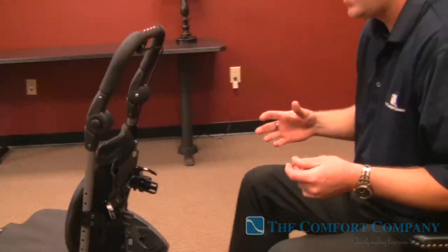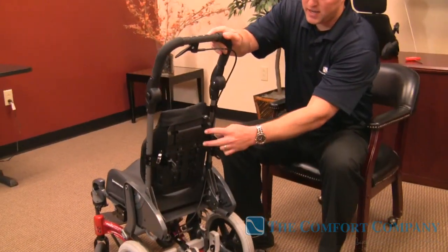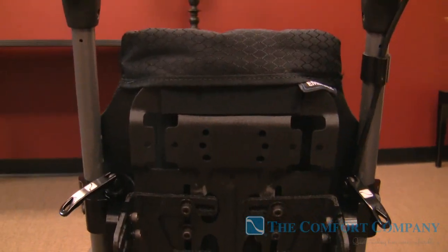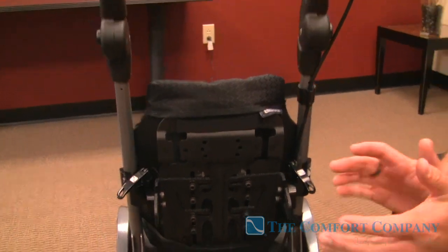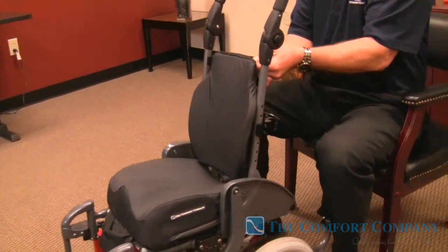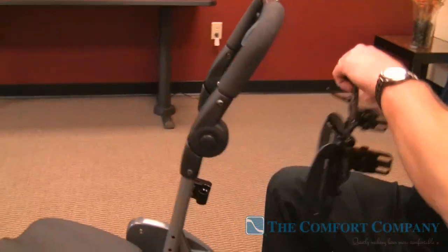For growth, the old way — T-nuts, plywood — had to add hardware onto everything. To show you the all-inclusiveness of this back: we've added strap guides into every single back, and we have a universal hole pattern so there's no need to add hardware for adapter plates for a headrest. It's a great all-inclusive system that stays light without adding anything. Now let me take the cover off and show you more adjustability — I'll take this back off and have one set up here in the back.